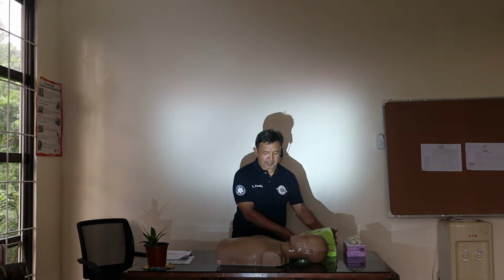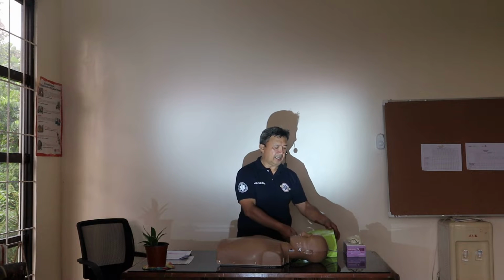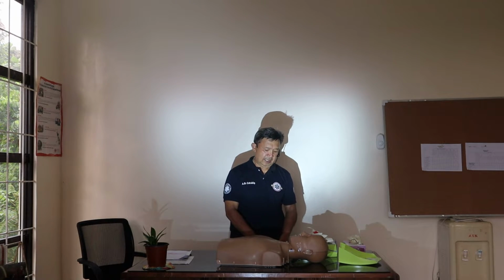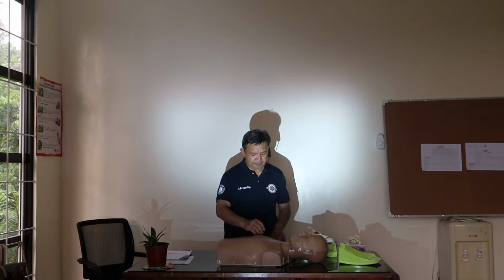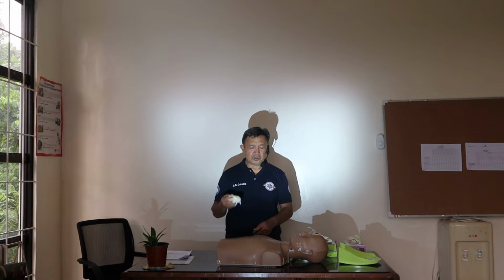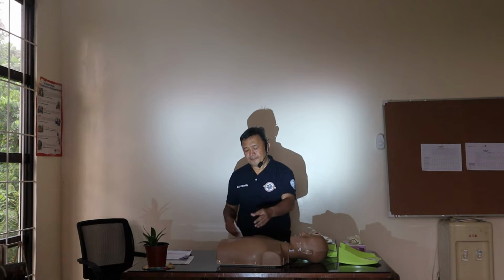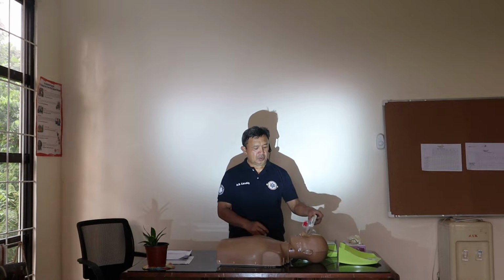Based on the instruction, first step, bring the AED, then open the AED. There are AEDs that are automatically on when you open them, but if not, you turn it on. Then remove the shirt, open or put it up, then wipe. Here's a sponge. Always be reminded that before doing any procedure, you must always wear your PPE or gloves. Then wipe the chest, remove the medicine patch if there is one attached, then wipe.